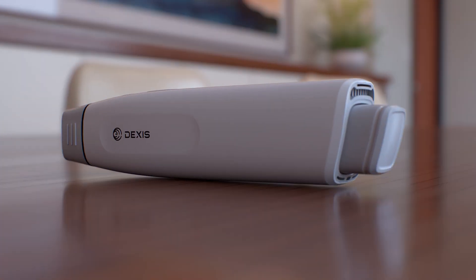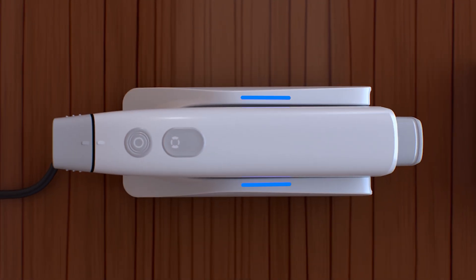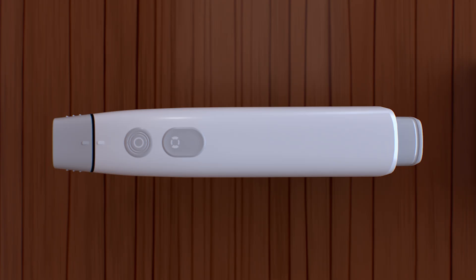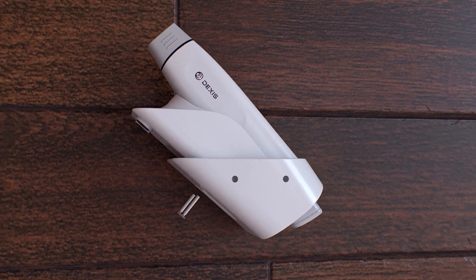Use the rear cover when the battery is removed. The charging station provides both safe storage and charging. Solid blue indicates the station is powered on; blinking blue means it is actively charging. The light stops blinking when the scanner is fully charged. Yellow indicates a charging error. For battery preservation, the scanner powers down automatically after 20 minutes of inactivity when running on battery. A vertical holder is included to mount the charging station directly to a wall or vertical surface, saving valuable counter space.